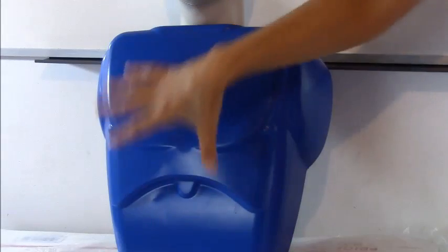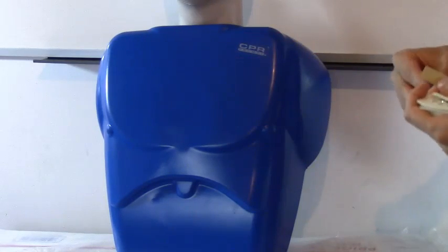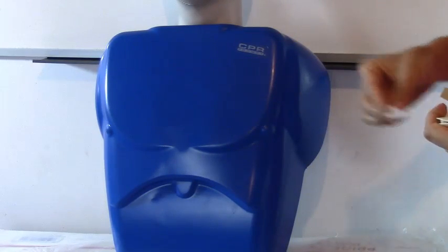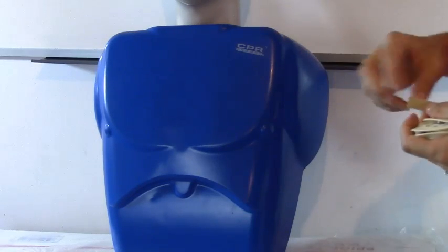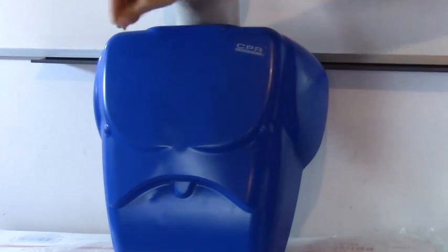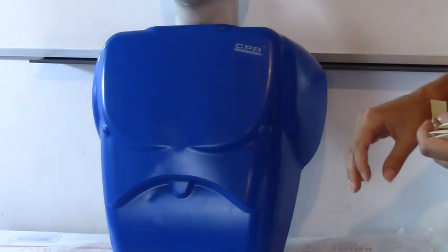Okay we have our mannequin and what we're going to do is you need to prep the chest first. So what you're going to do is take your alcohol prep and clean your landmarked areas and then you'll take your exfoliation paper and just barely scrape the skin on your landmarked areas which we'll go over in here in a second.